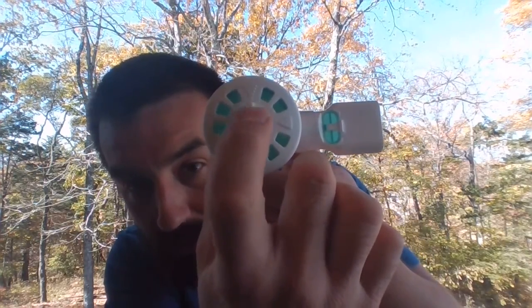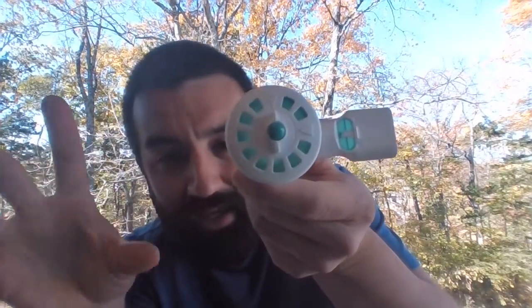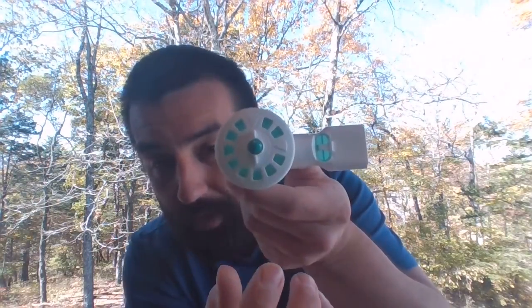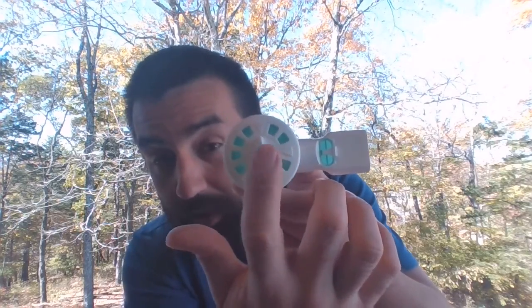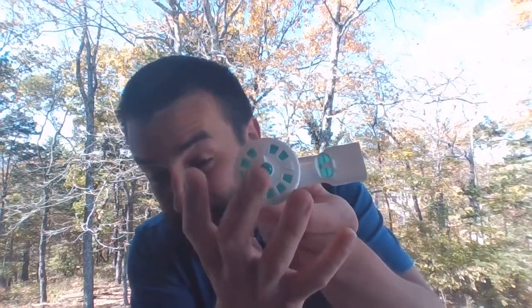So if you see the little dots, that is breath actuated. It's intermittent, not a continuous aerosol output. It's only going to give medication when they take a breath, and when they exhale, or they stop drawing in, it's going to stop delivering it. If you had a patient we're trying to run it like this.